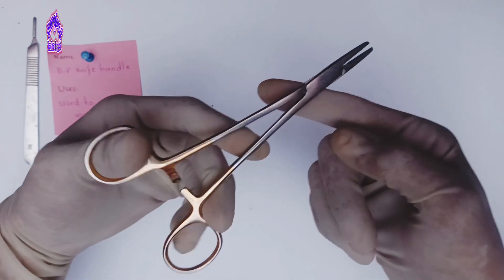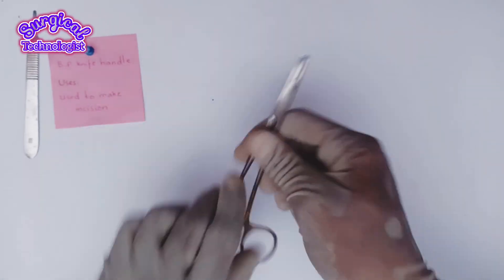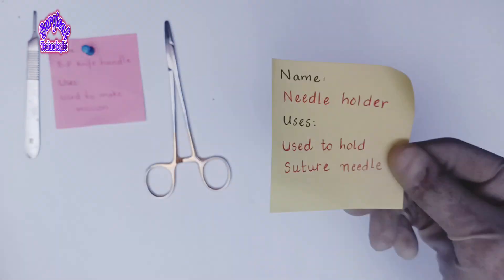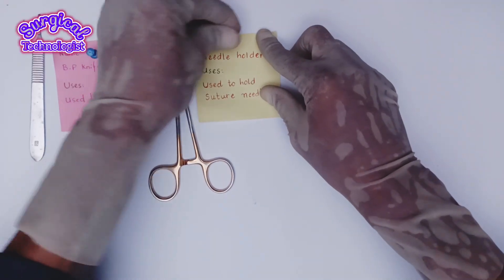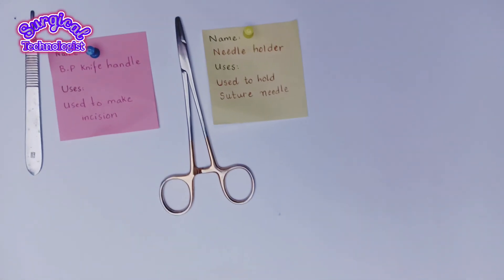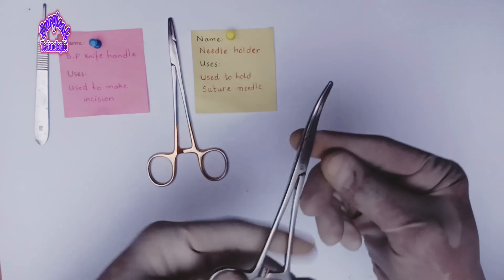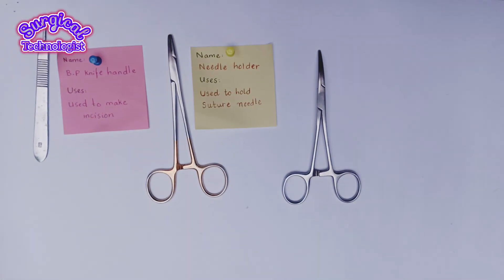The next instrument is the needle holder, used to hold the suture needle. Then we have the Crile artery forceps, used to clamp, control, and occlude blood vessels.